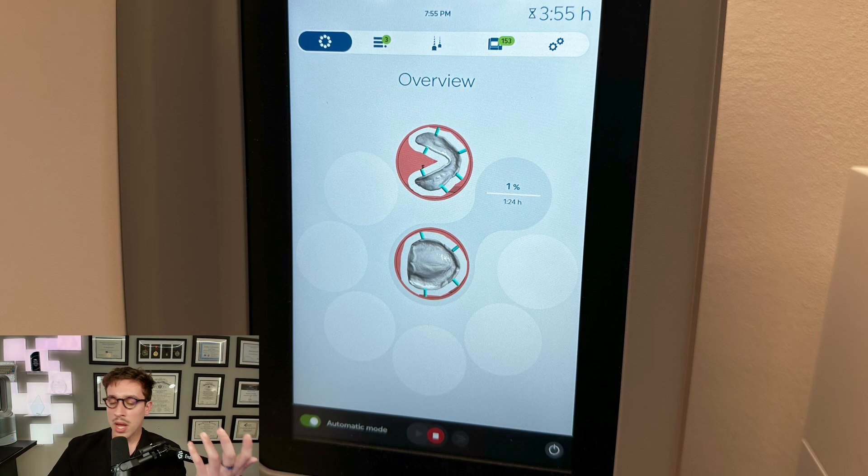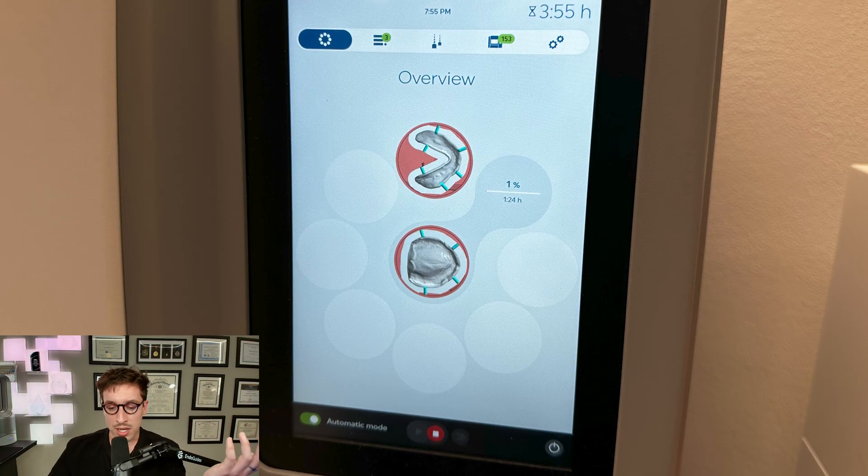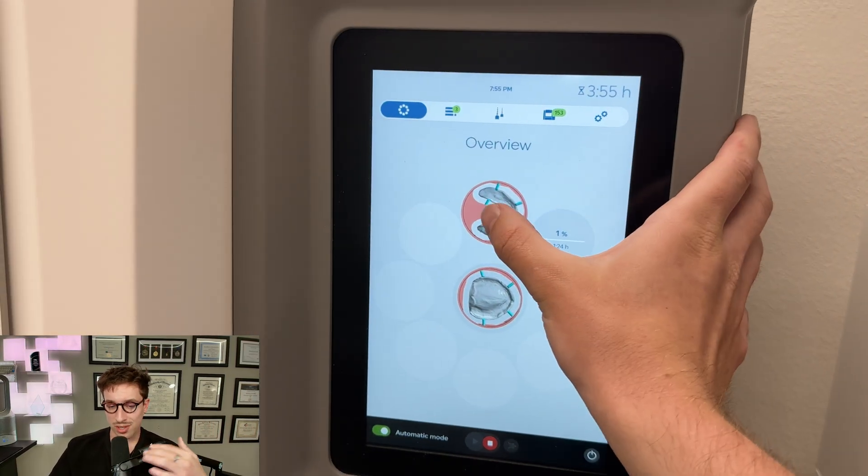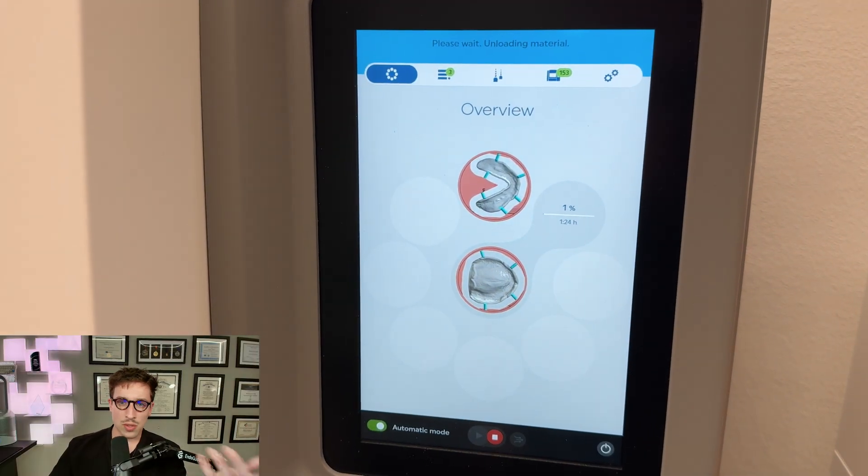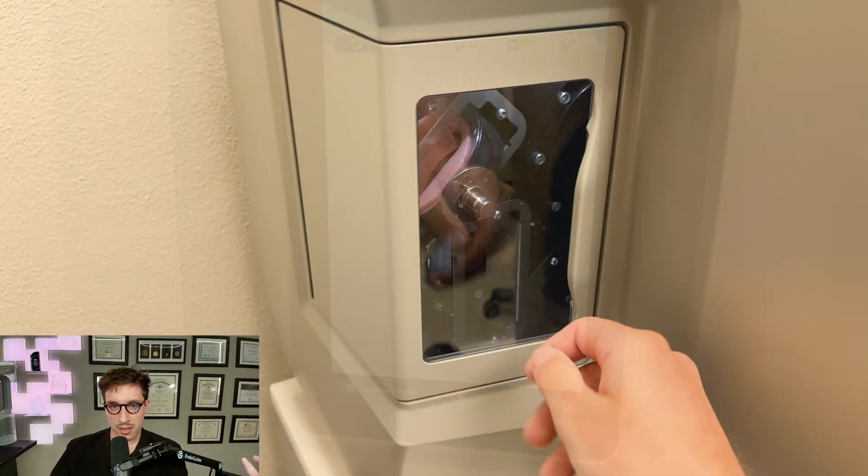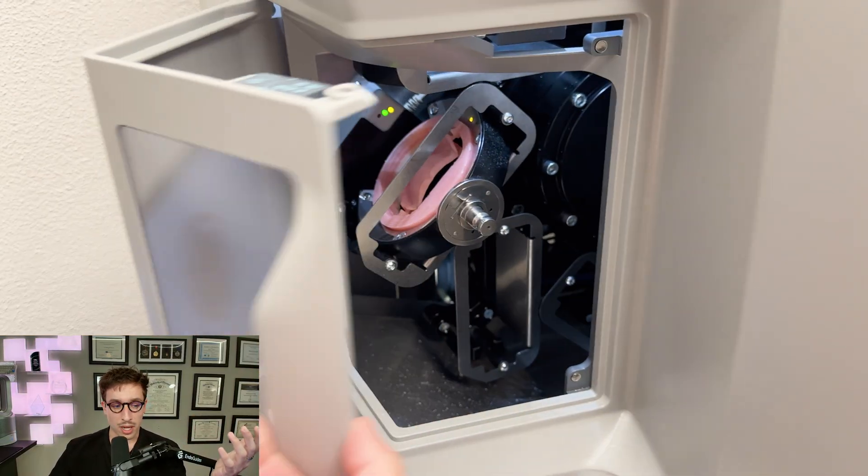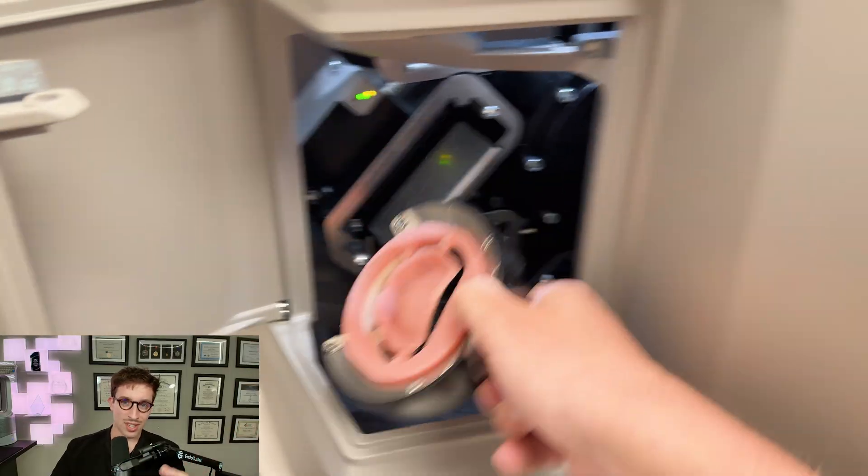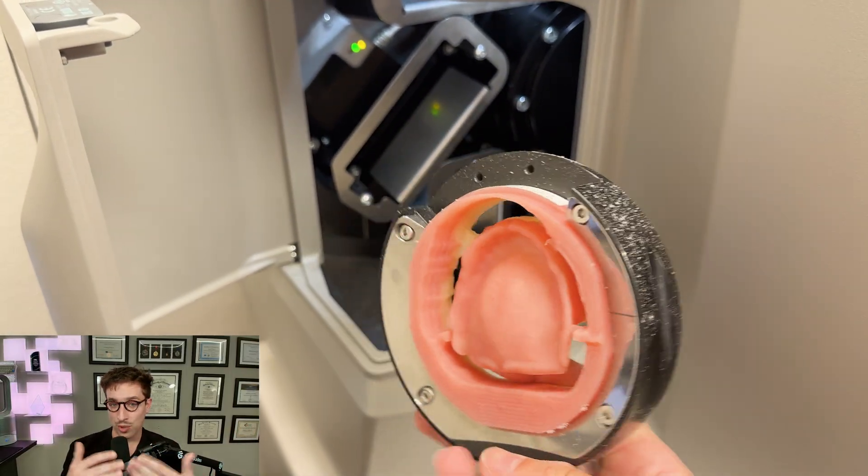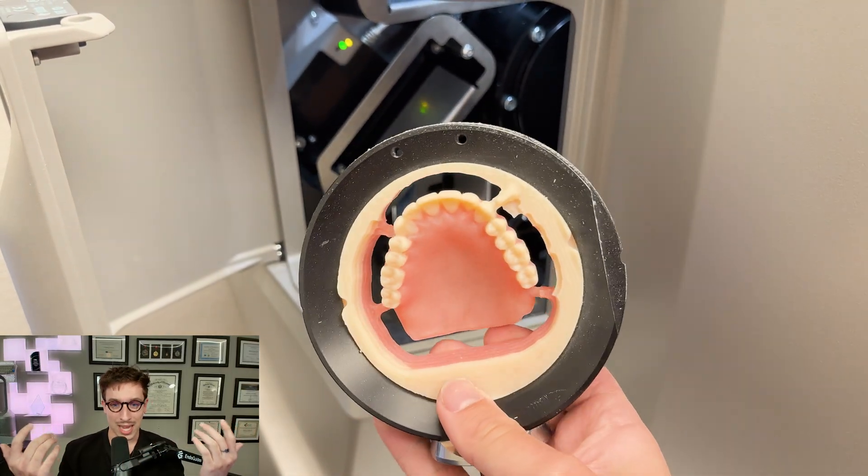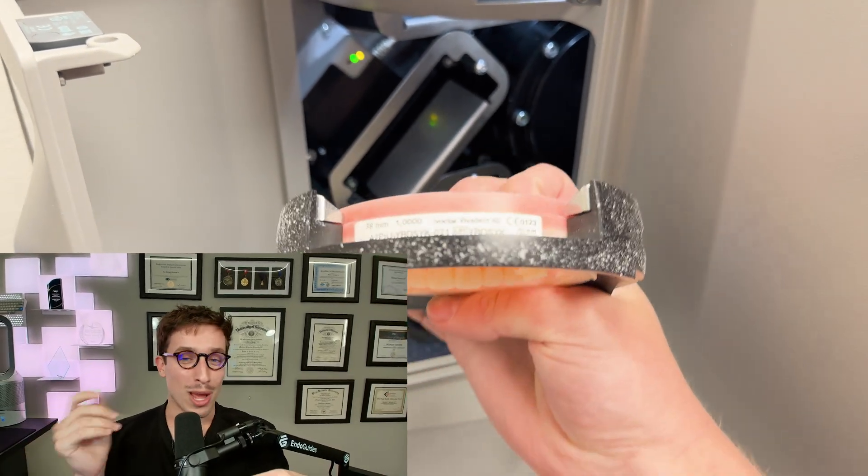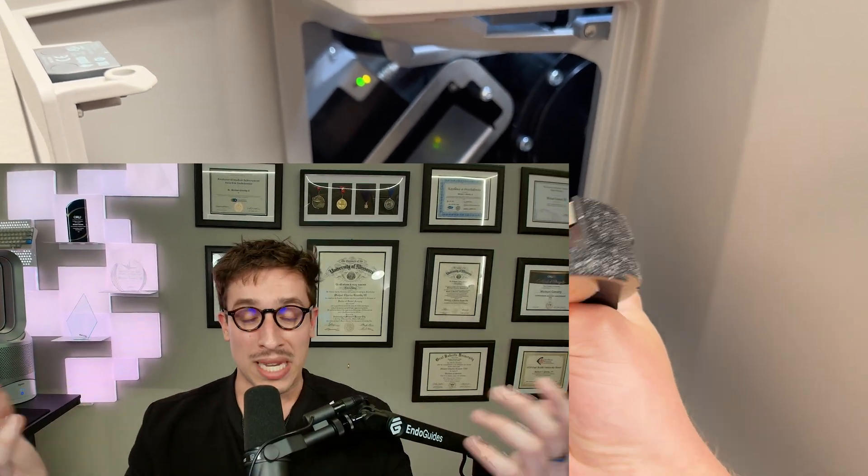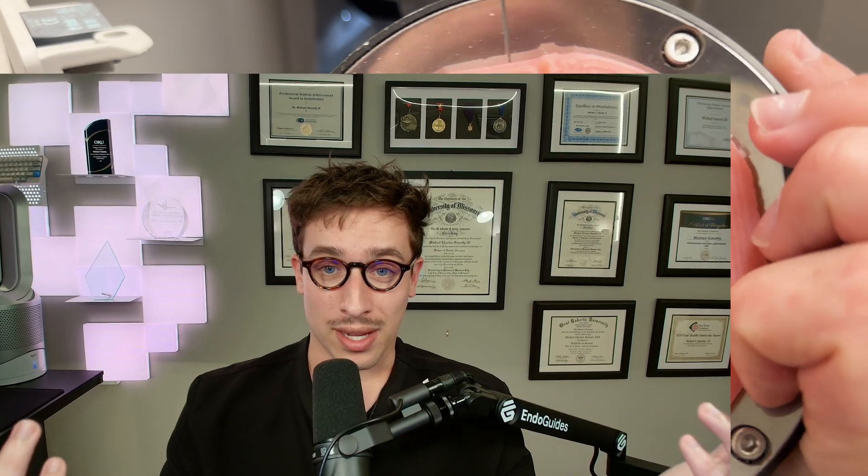Now that we have it all done, you can see here this is how you eject it, just select whichever one that's done, hit eject, and then pull it out. This is what it looks like. These monolithic dentures are phenomenal. As you can see, they're gorgeous. The gingival margin is truly mind blowing. For me, I still every single time I see one, I'm just blown away by how perfect it is, because it is truly monolithic in every sense of the word.